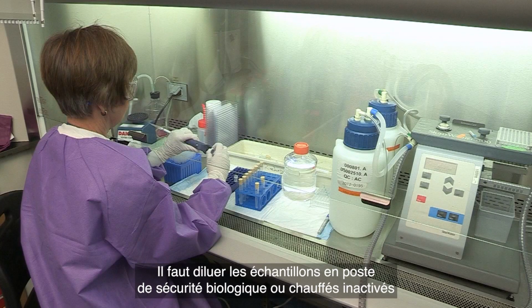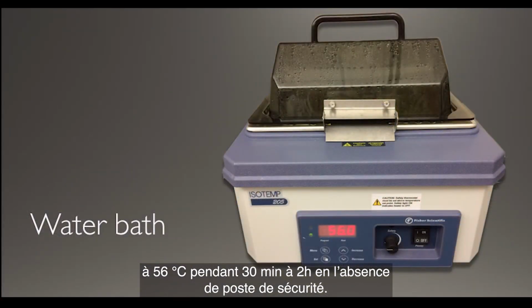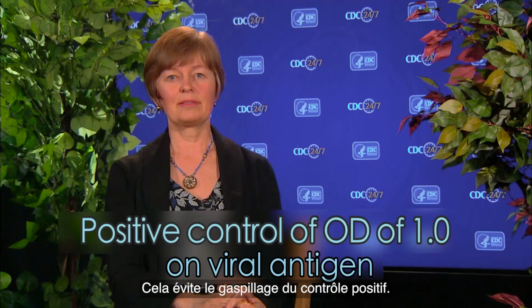Samples should be diluted in a biosafety cabinet or should have been heat inactivated at 56 degrees C for 30 minutes to 2 hours if a safety cabinet is unavailable. Dilute the positive control according to a previous titration, where the resulting optical density should be around 1.0. This is to avoid wastage of positive control.